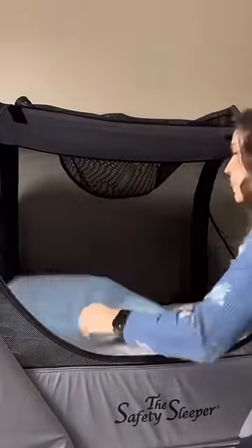Now I've completely unzipped the sheet, and I have his other sheet ready to go. I have to take off his dirty liners and put clean liners down, and then I'm going to get ready to zip in the new sheet.